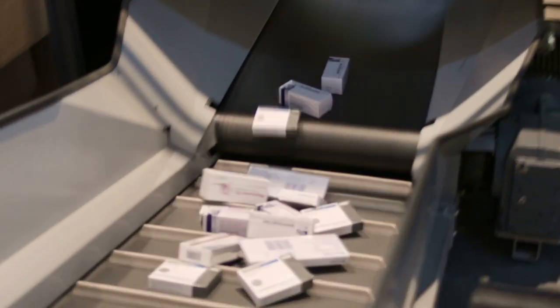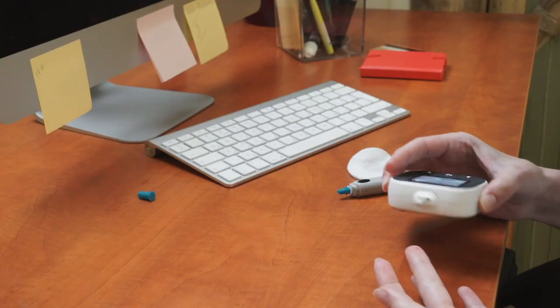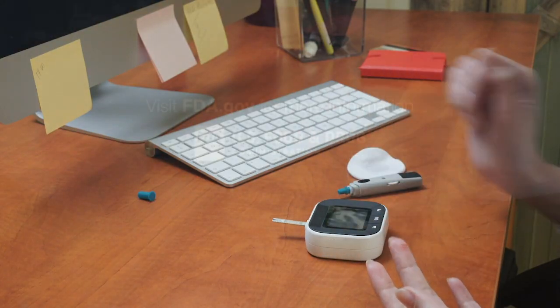Also, make sure your test strips are authorized for sale in the United States. Stay safe when using test strips. Your health depends on it.